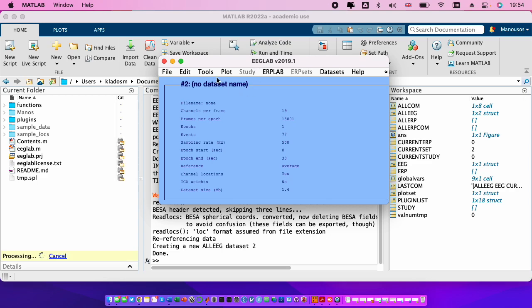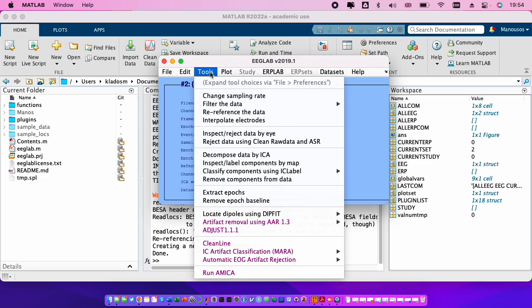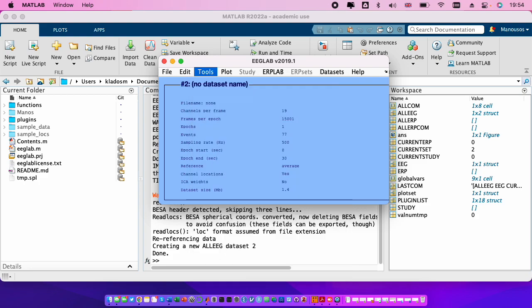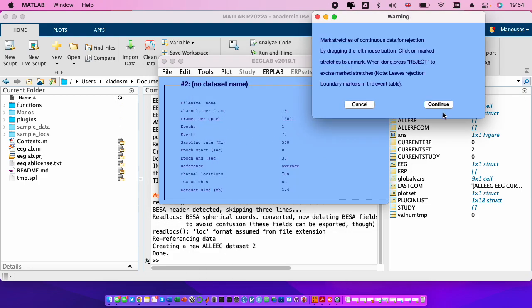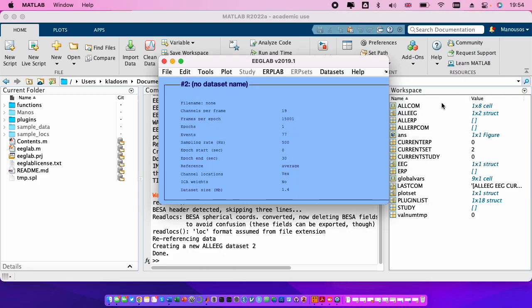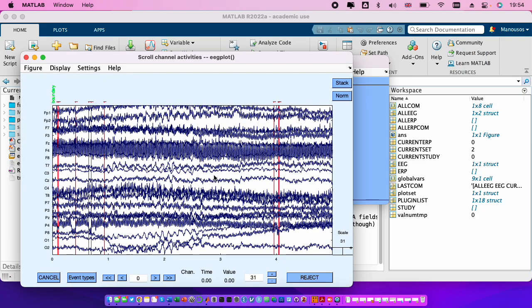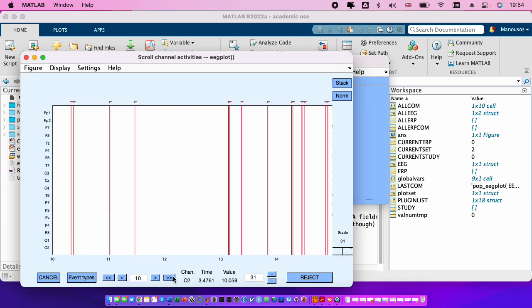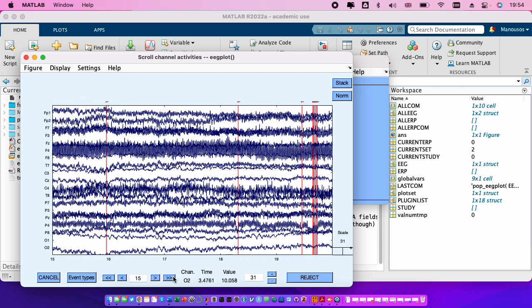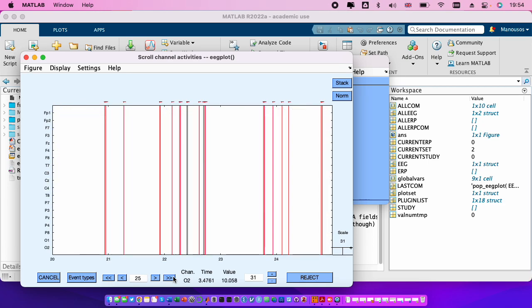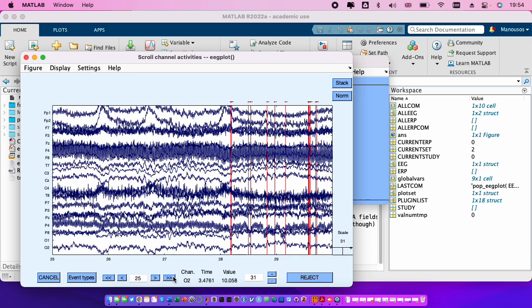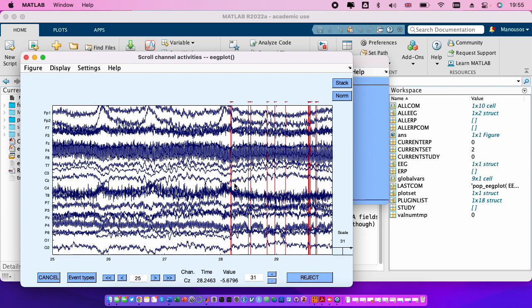Let's inspect our data. We go to tools, inspect and check data by eye, and then continue. We see that we have noisy signals, a lot of noise, we have blinks, we have the 50 hertz the line interference.